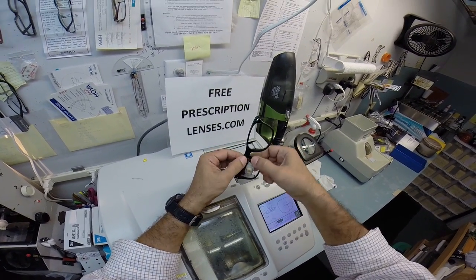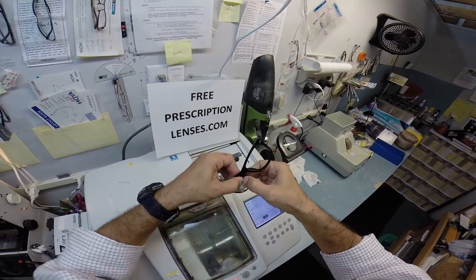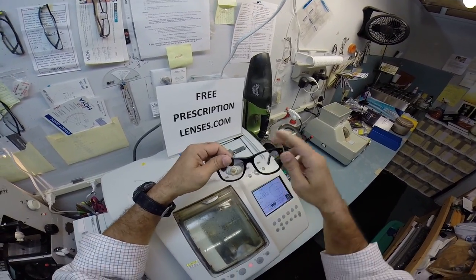So again, I'm going to tuck it in at the outside corner first and then using my thumbs, I press down at the nose and it snaps right in. So now I want to do the same thing for the left.